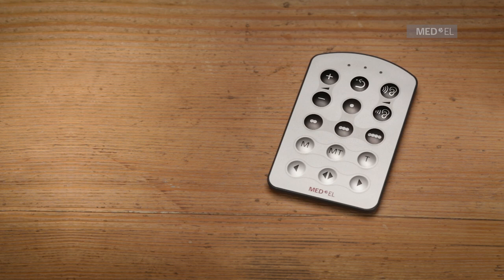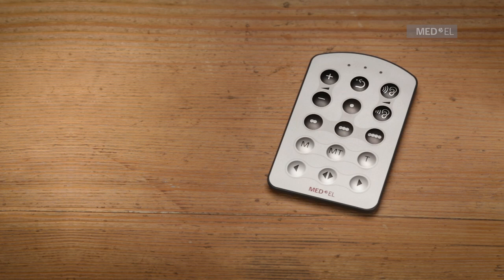Your audiologist can selectively disable any of the functions on the fine-tuner remote. The fine-tuner features an optional automatic keyboard lock to avoid unintentional operation. This locks the keyboard if no key is pressed for more than 10 seconds.